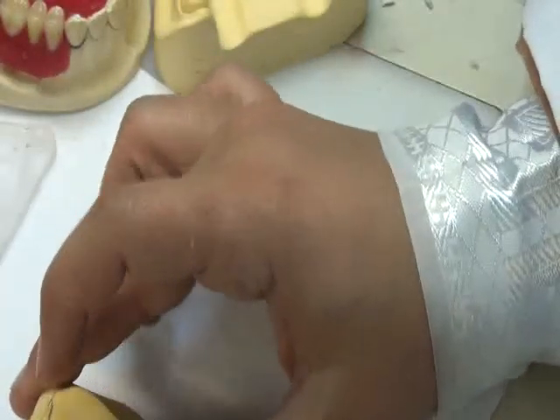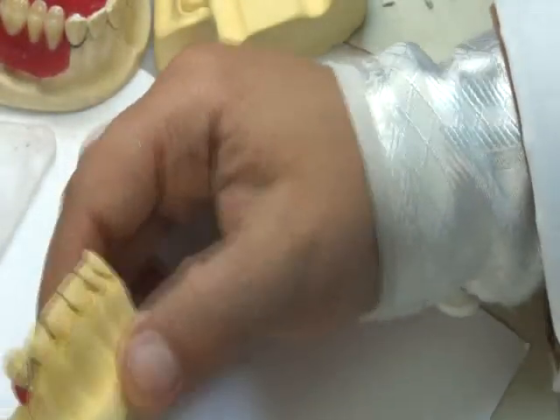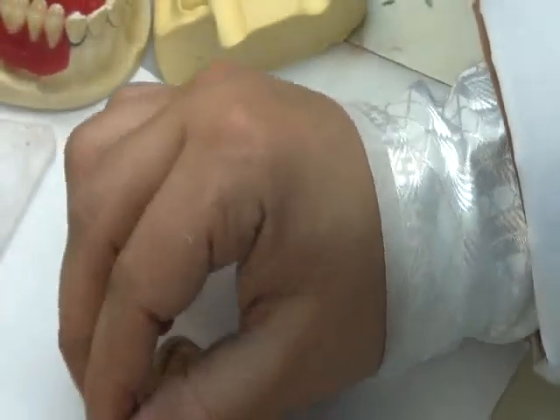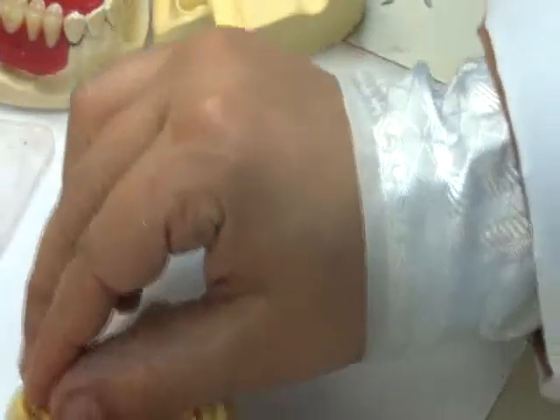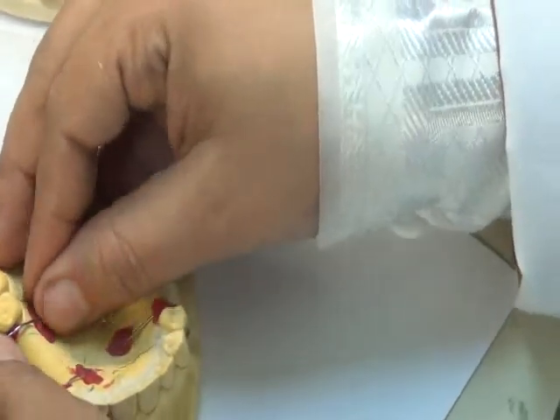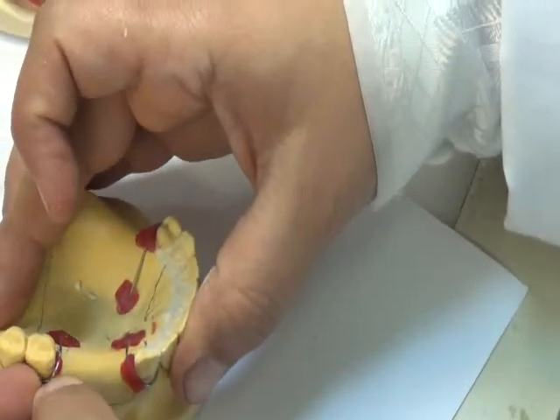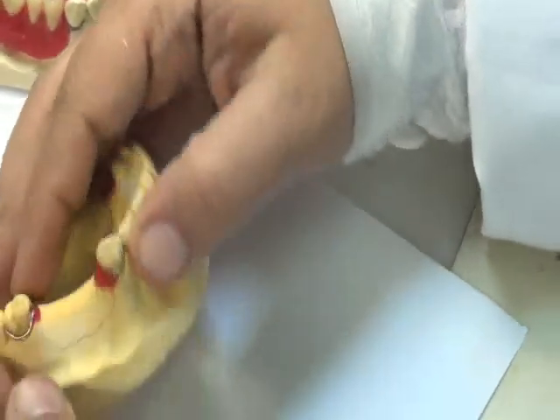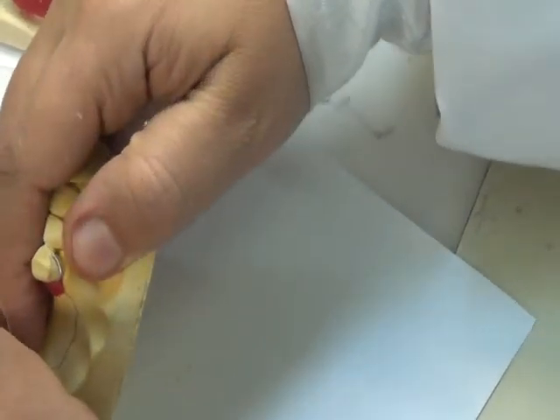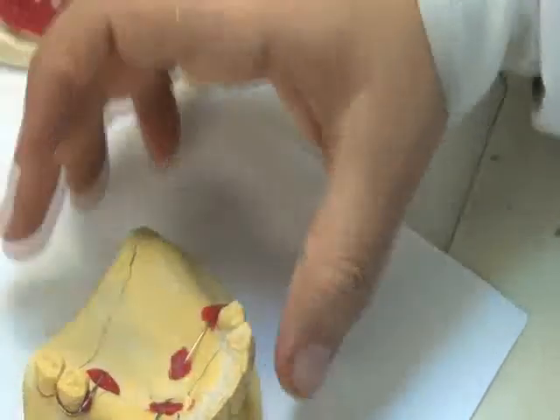And my final addition. So now the wires are firmly attached to the teeth in the correct manner that I want them, and they're not moving around. I'm preserving them proximally. Okay, last piece of wax. Fix the wire in place. Make sure it's in the correct location with the tooth, and it's now fixed in place. So all wires are fixed.